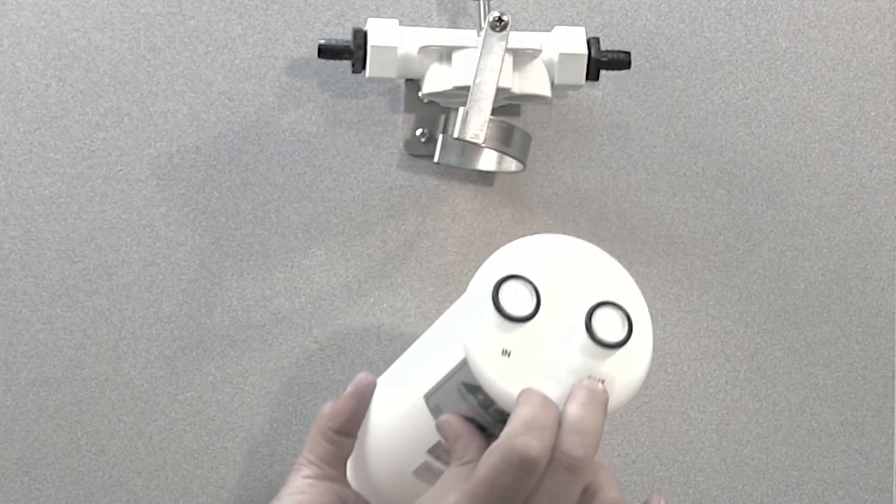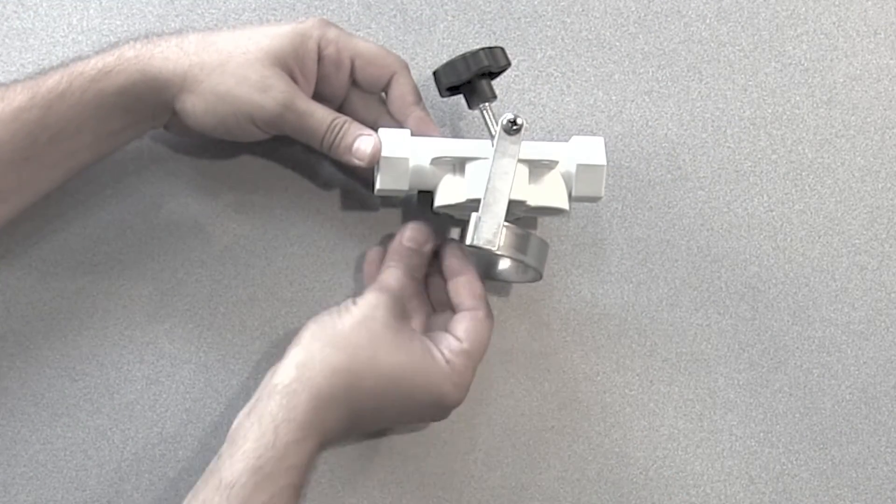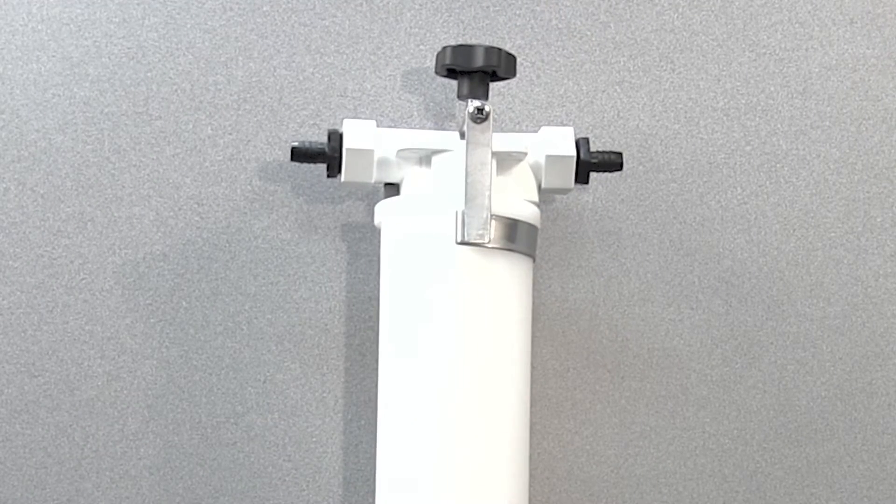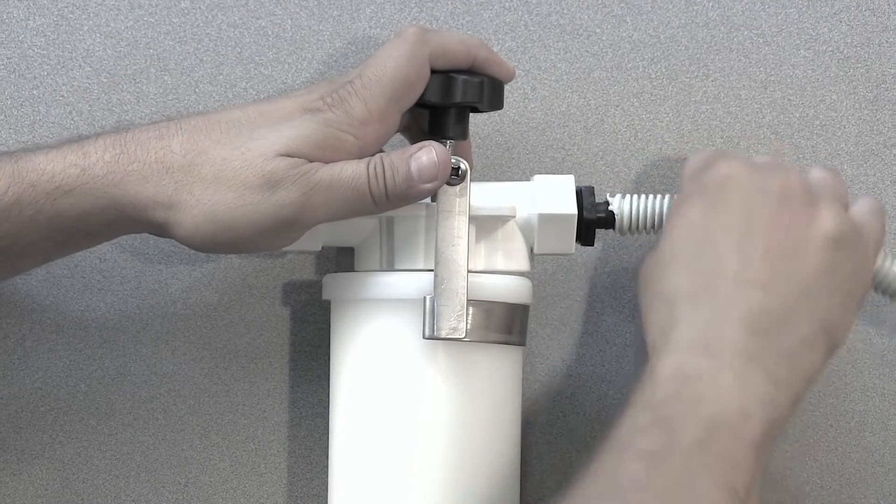Many areas now require installation of amalgam separators on dental office waste lines. In many cases it's a simple installation that anyone can do. We'd like to show you how to install a system that is cost effective and simple to maintain.